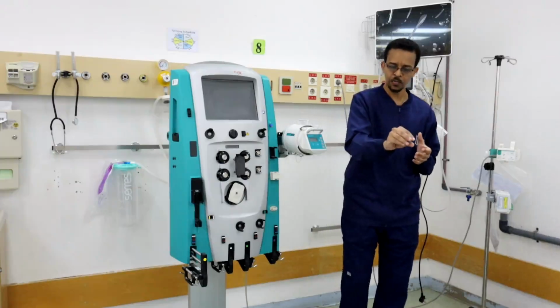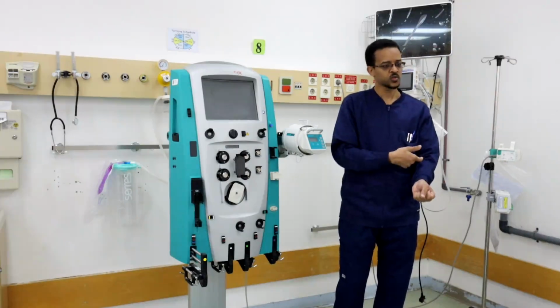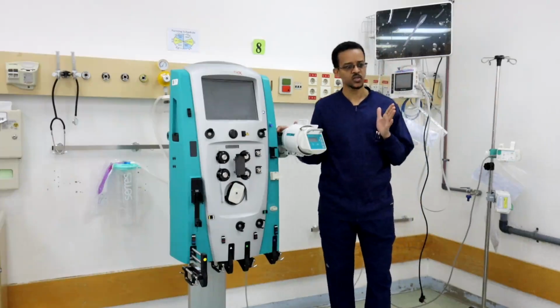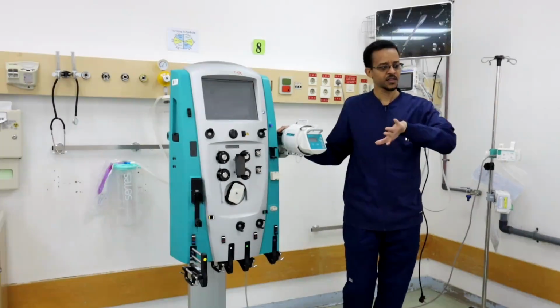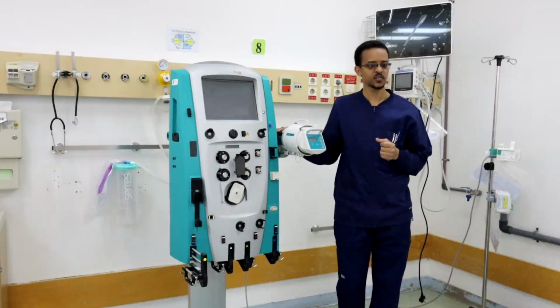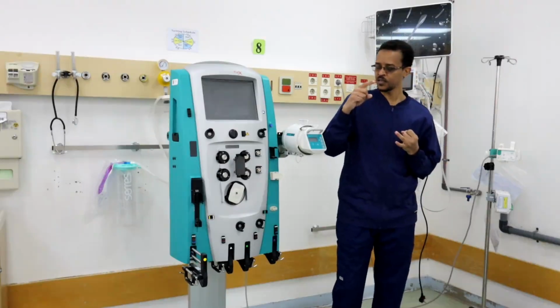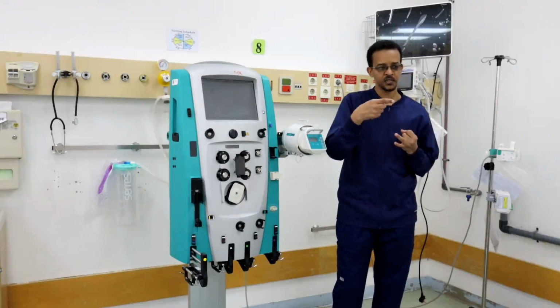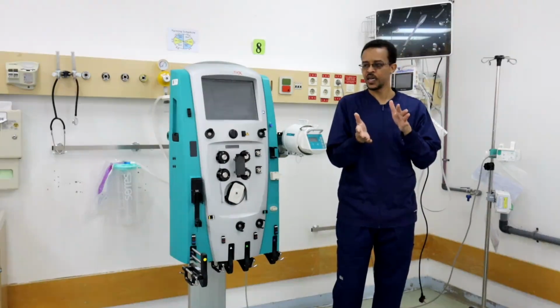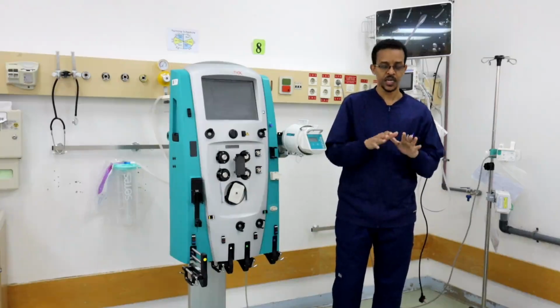We can take blood from artery and put the blood back to vein. We can use fistula or AV graft, but for CRRT it's not preferred or not recommended to use any other route than venous route, or than central venous route, because it's prolonged therapy. During this therapy many events can occur, including care, including shifting of the patient, including for agitated patient or unrestrained patient. Many events can occur.